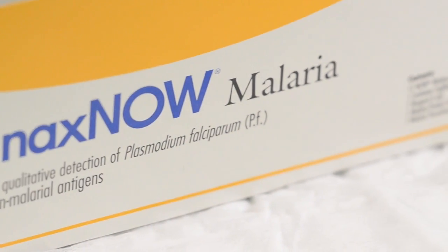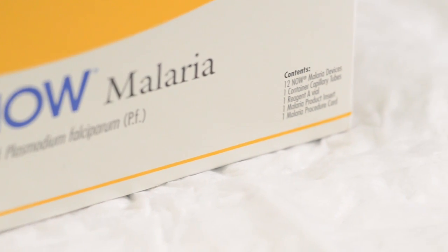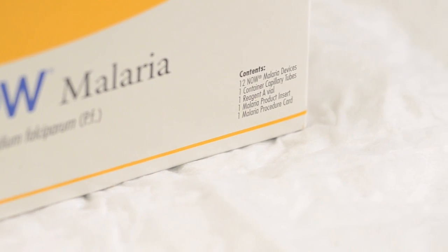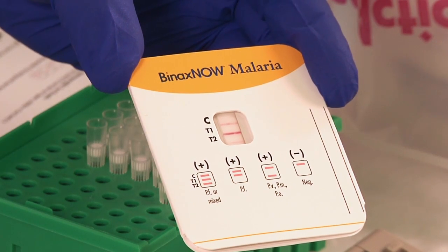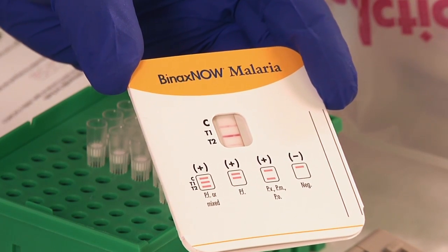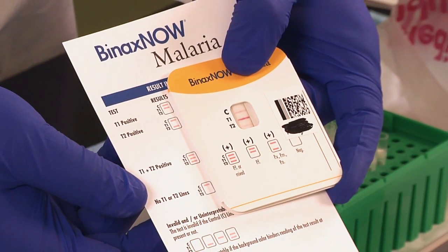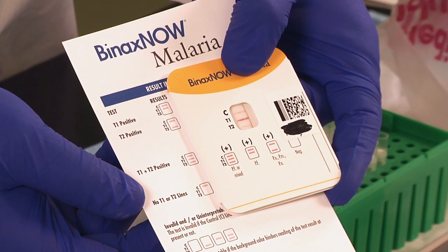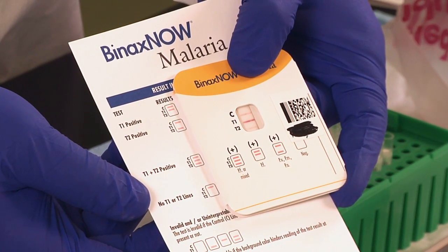The only RDT approved for use in the United States is called BinaxNOW malaria. This instructional video was created by CDC to provide guidance regarding the procedure and results interpretation.